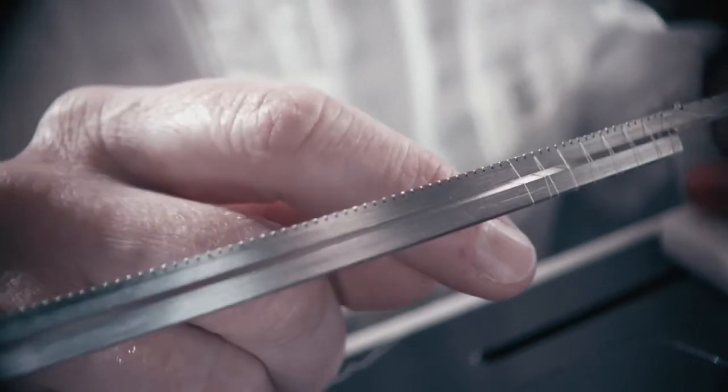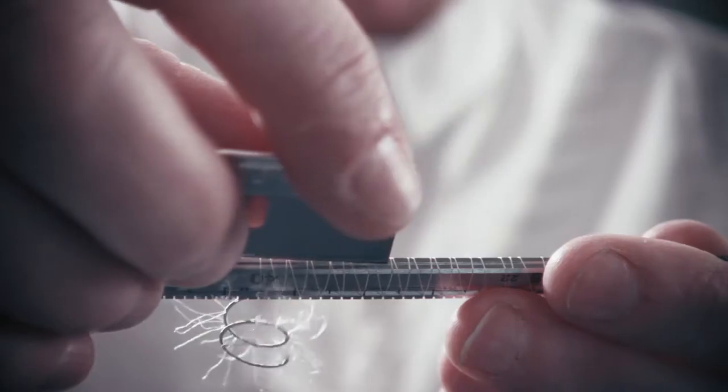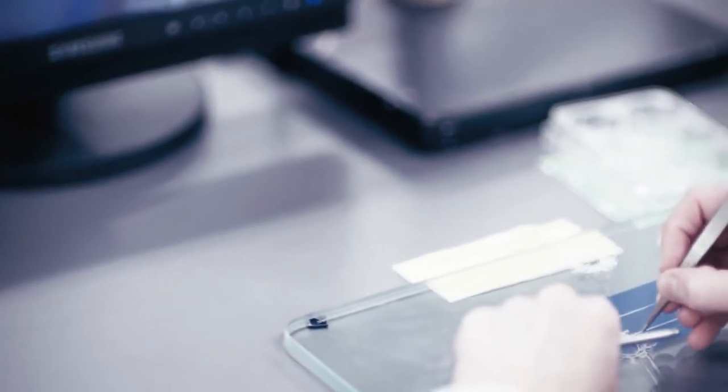Various processes are used to secure a dense network of fibers to the coil. The structure of these fiber strands are robust yet porous, allowing for rapid thrombosis and fewer coils per case.